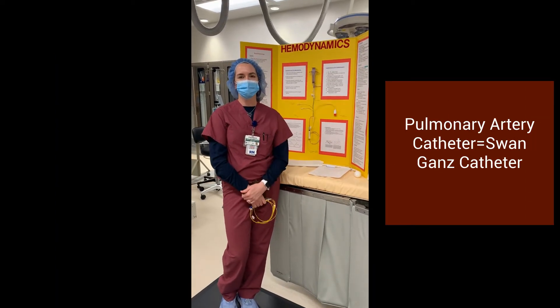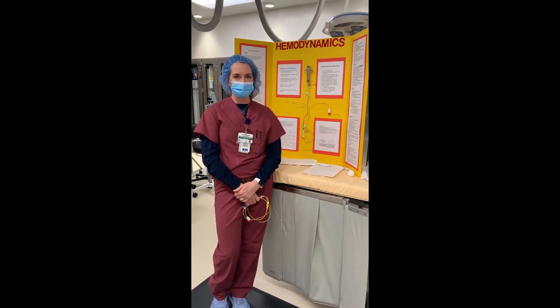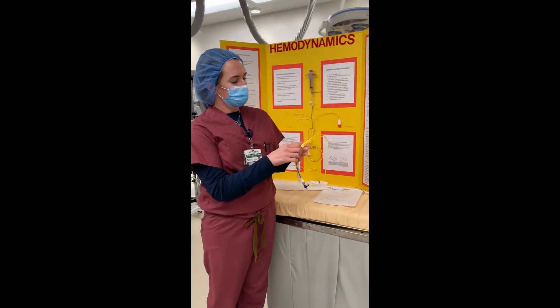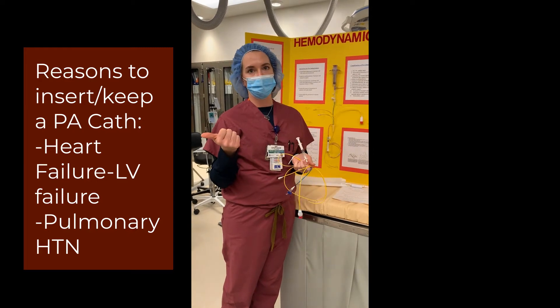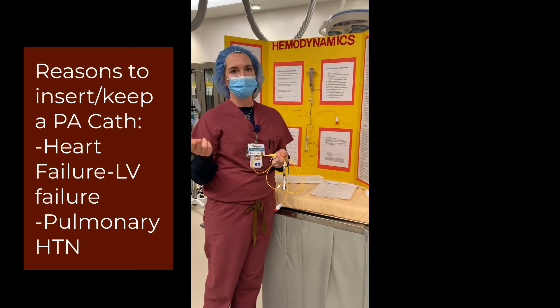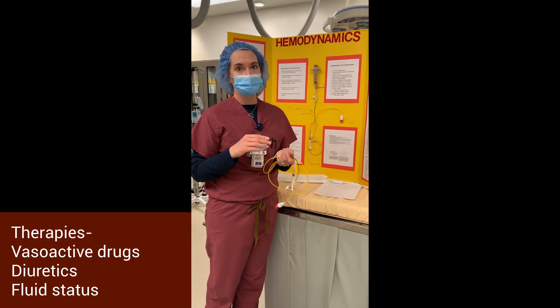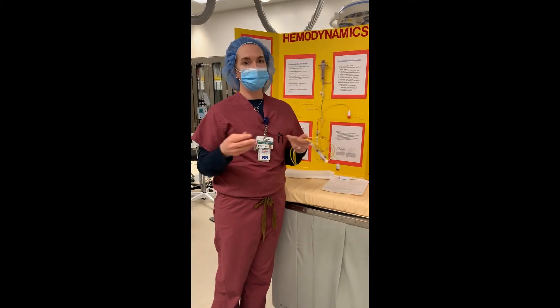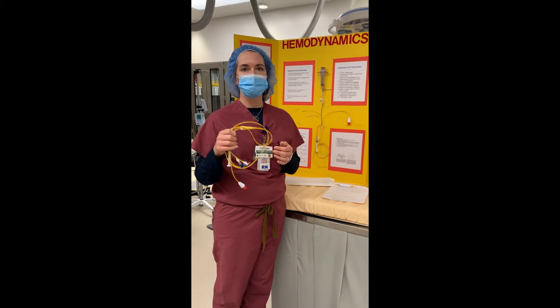Hi everyone, it's Stephanie down in the cath lab. Today we're going to discuss pulmonary artery catheters, otherwise known as Swan-Ganz catheters. I have one here with me today. The reasons why you would see a Swan or PA catheter would be for our heart failure population, specifically LV failure, or any pulmonary hypertension population — that would also be an indication.